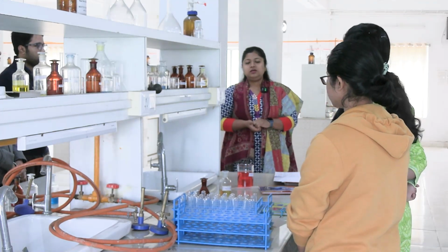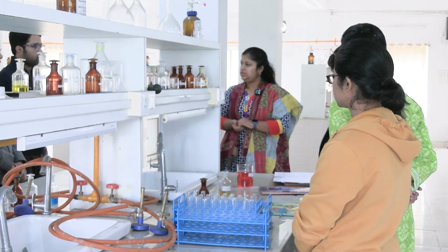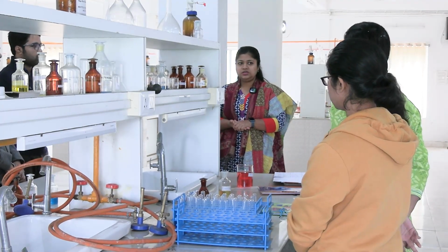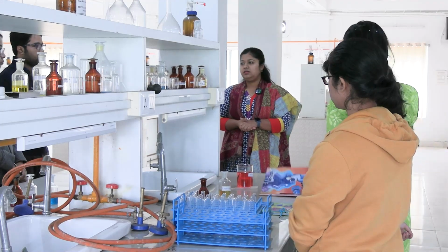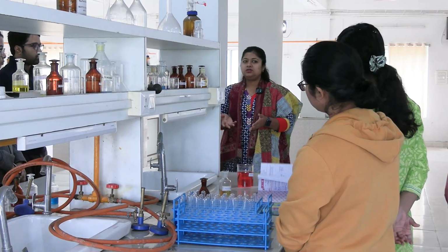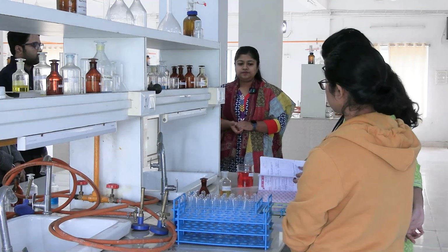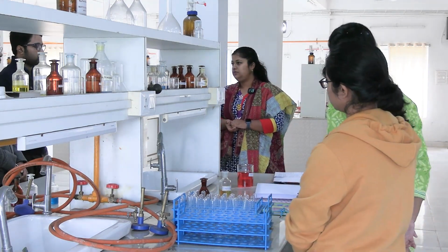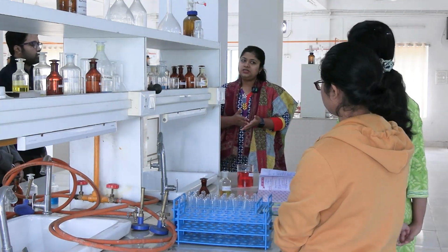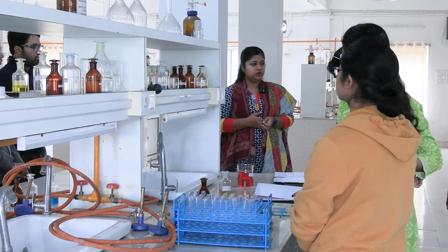Okay, now coming to the test procedure. Which test do we perform? Orthotolidine test to detect blood in urine. Previously we used to do the benzidine test. Benzidine is very carcinogenic, it causes bladder cancer. If asked why benzidine is obsolete now, it is because it is carcinogenic and used to cause bladder cancer. So nowadays we use orthotolidine to detect blood, and the principle of both is the same. What is the principle behind these tests? Peroxidase activity of hemoglobin.